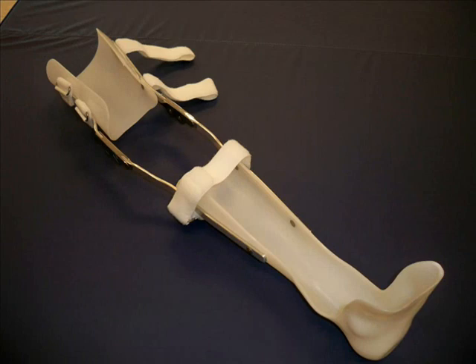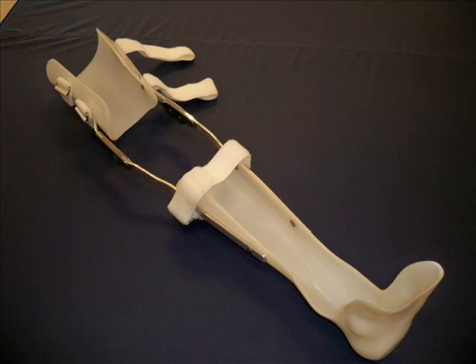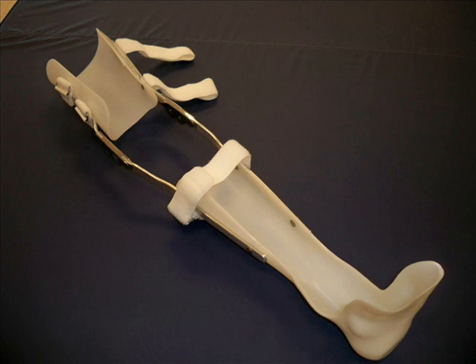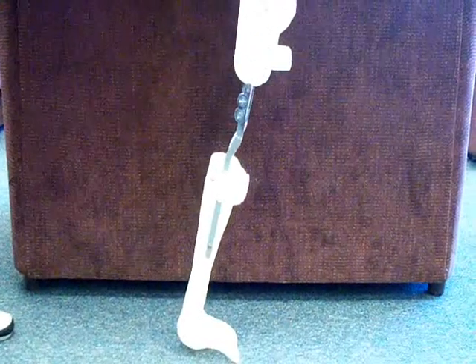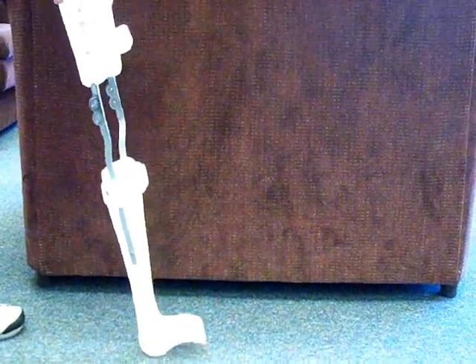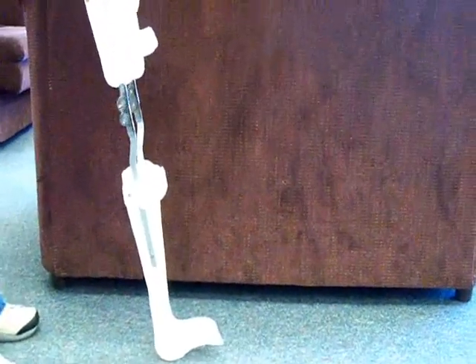This is a molded plastic KAFO. The leg portion is like an AFO, and metal uprights have been added to connect the ankle foot portion to the thigh band. Velcro fasteners secure the orthosis at the thigh and just distal to the knee. The knee joint does not lock on this orthosis; there is some friction in the mechanism so the joint doesn't just drop. The knee is stabilized by the location of the axis of the orthotic knee relative to the wearer's knee joint, so the vertical gravity line is in front of the axis, holding the knee in extension during stance.